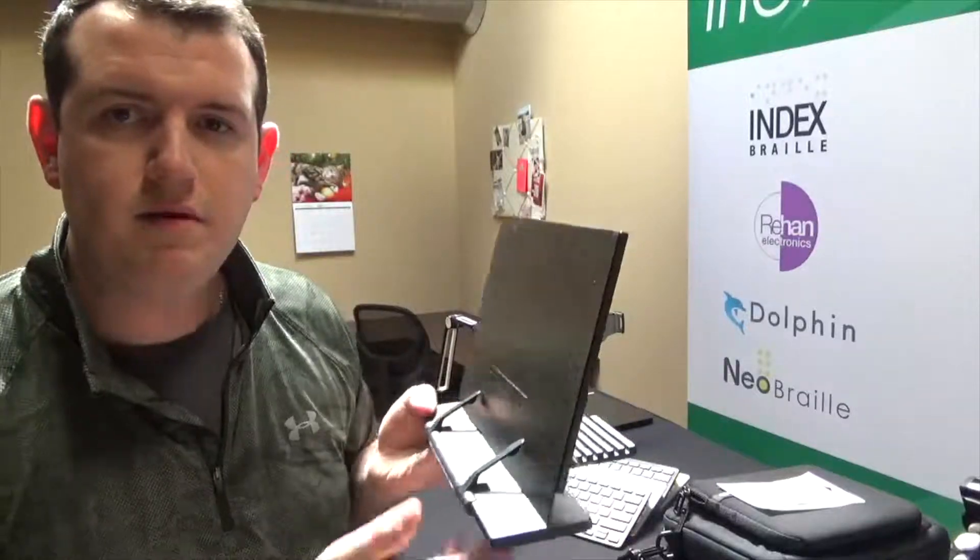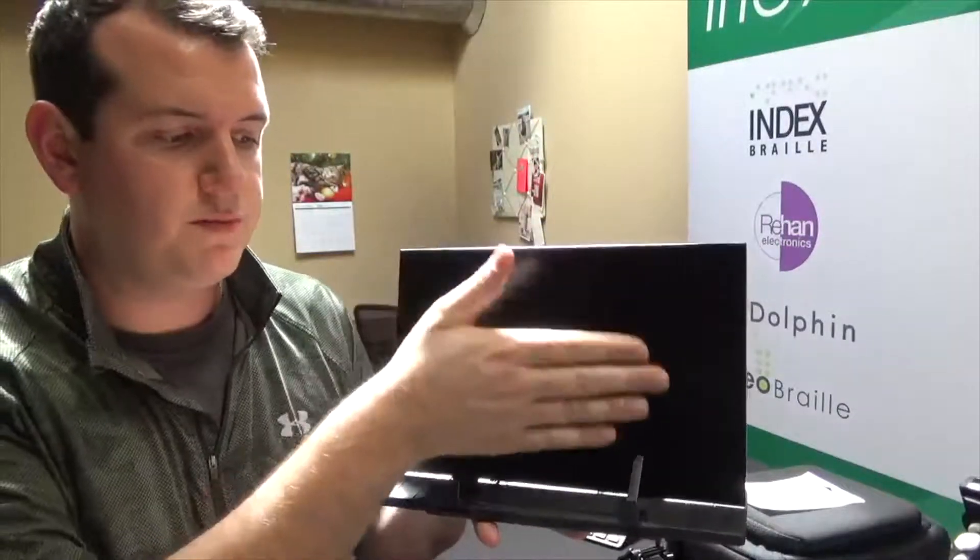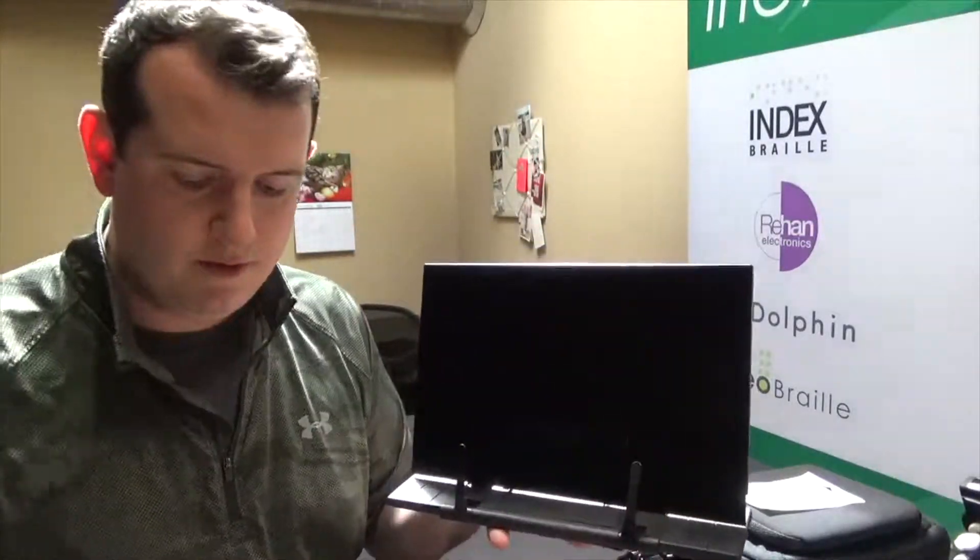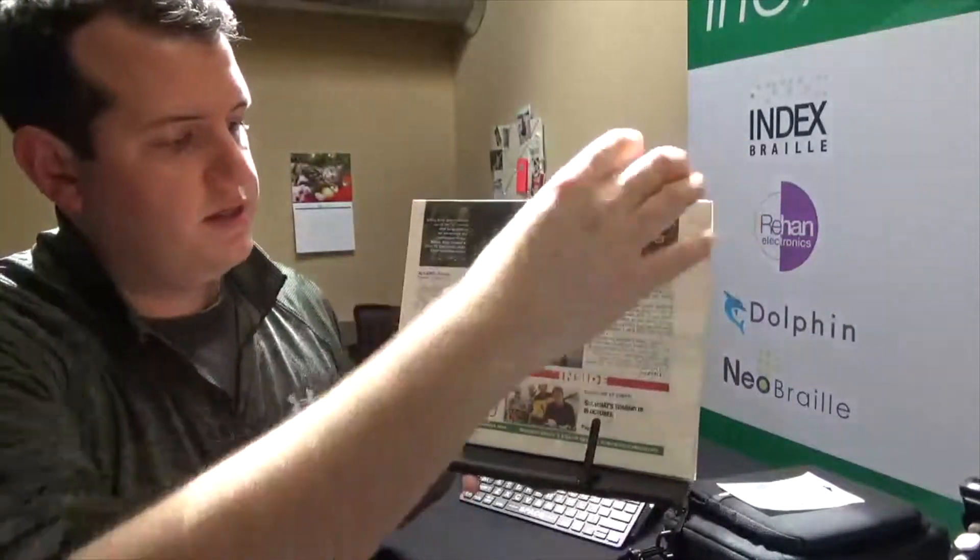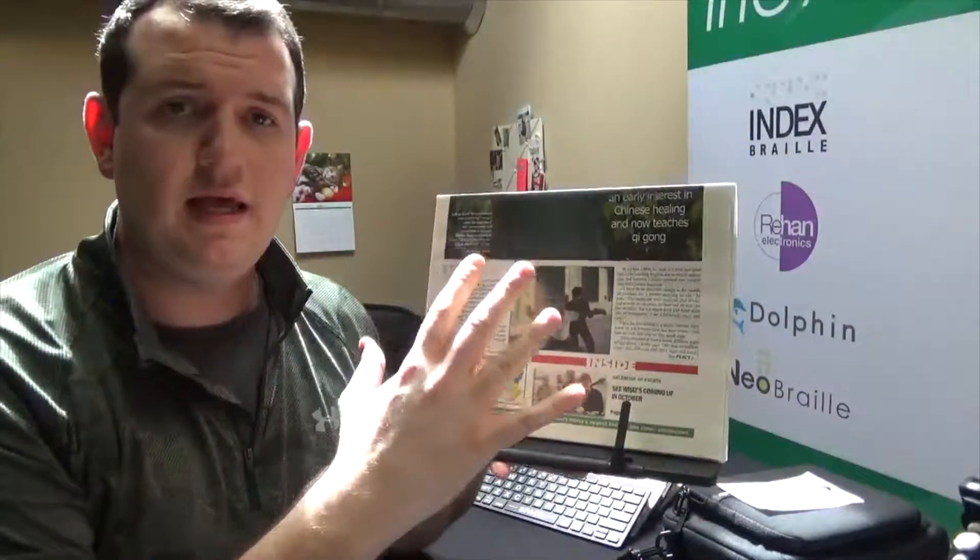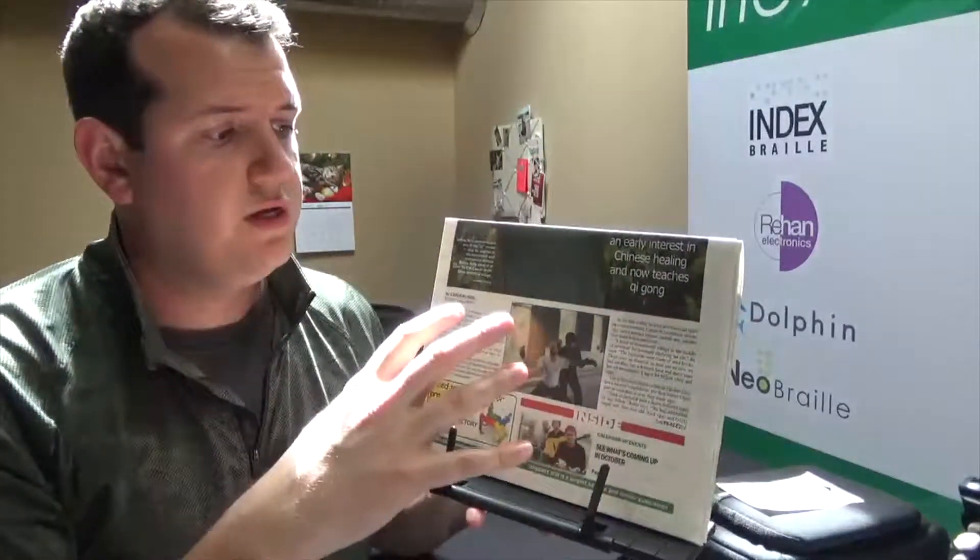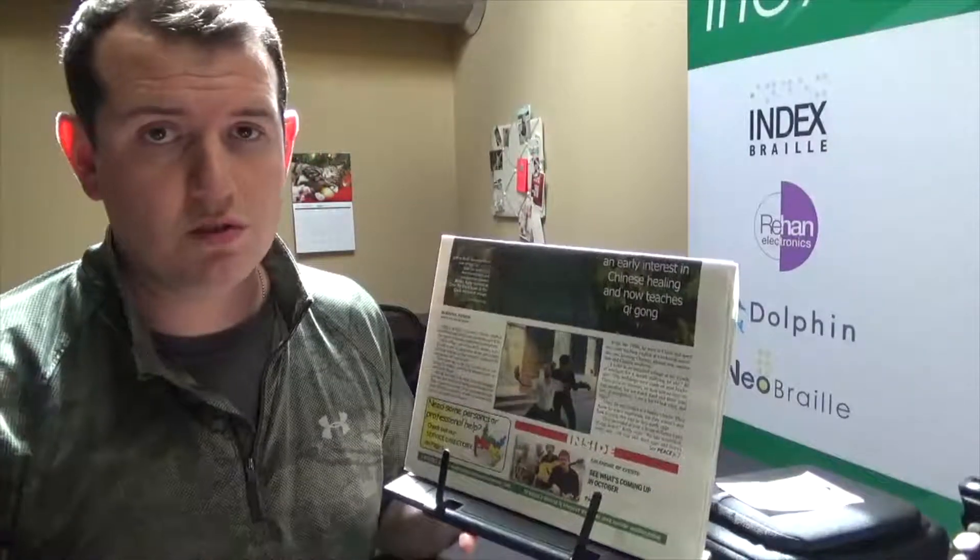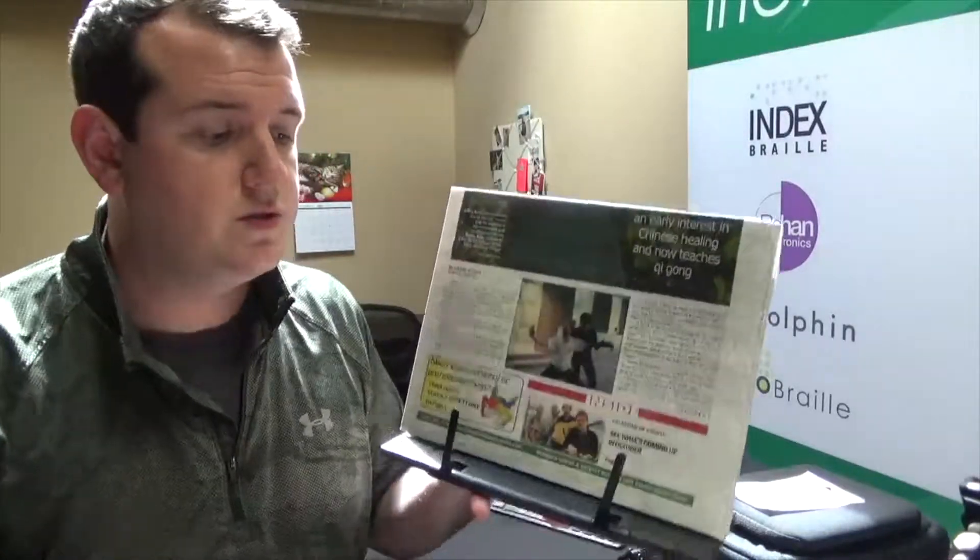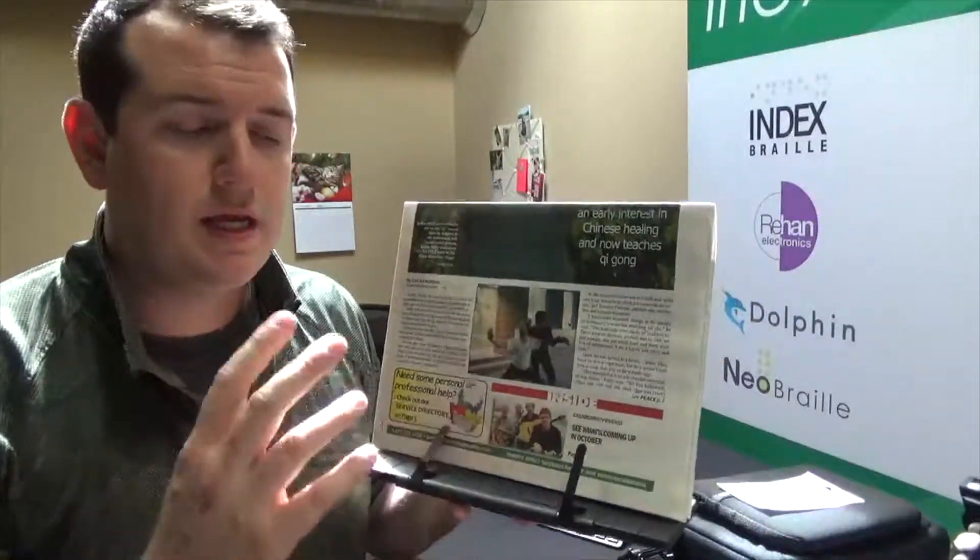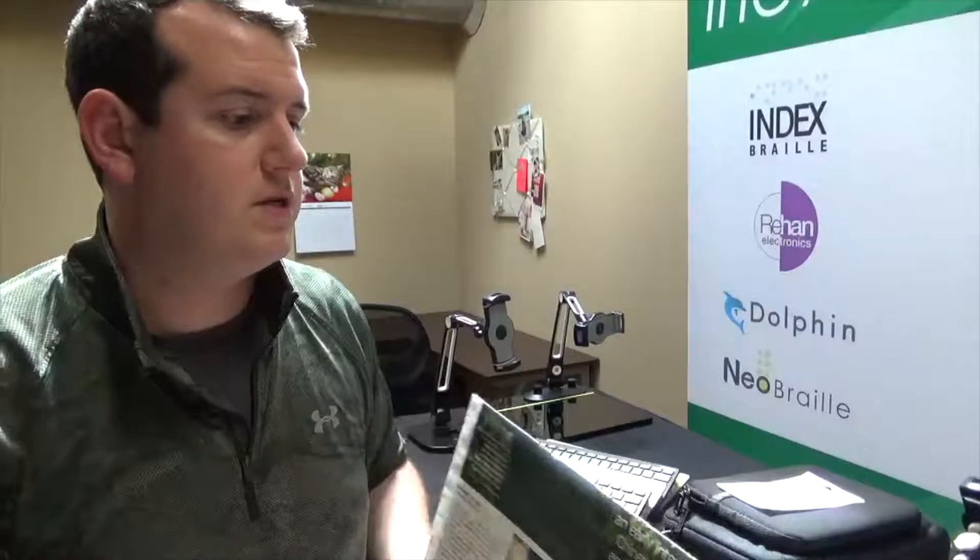First of all, this is a document reading stand. You can clip your document right inside here. For example, this newspaper, set it up and it just provides a nice reading angle for you, especially if you're using one of the tablet holding arms to read using the magnifier or use the OCR to have it read back to you. This little document stand is really handy and goes along with your Synapptic device.